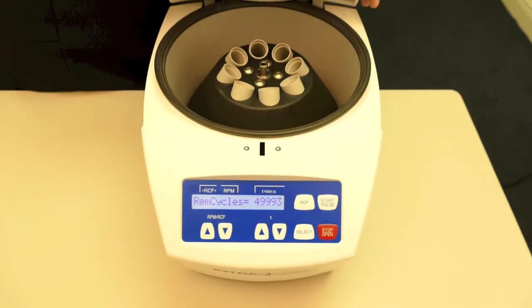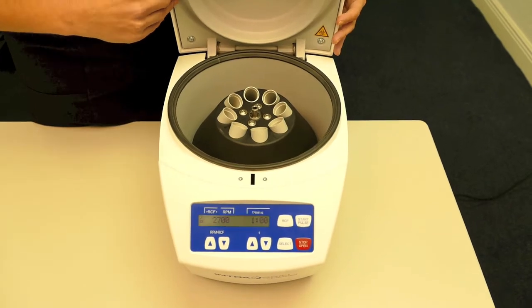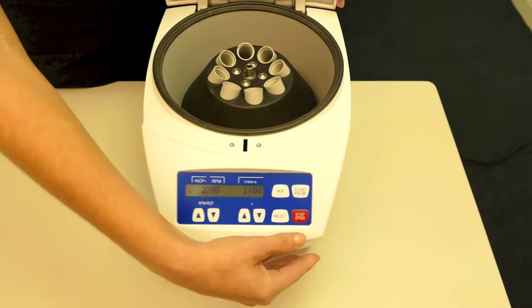The machine will automatically open. It will beep to let you know the tubes need to be removed. It will beep until you push the stop button.